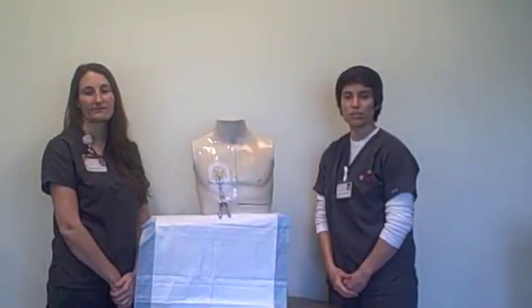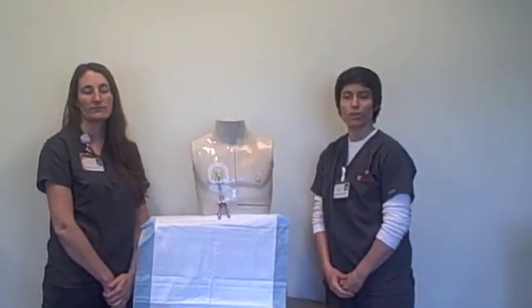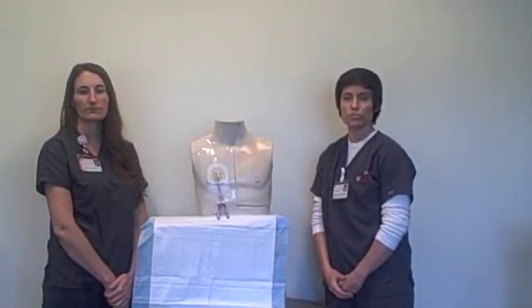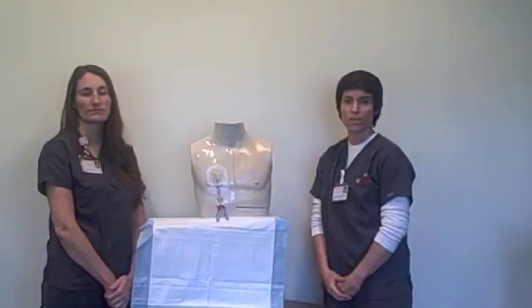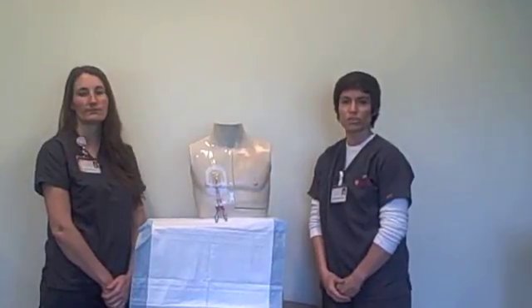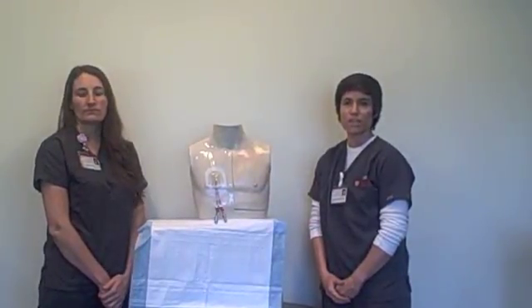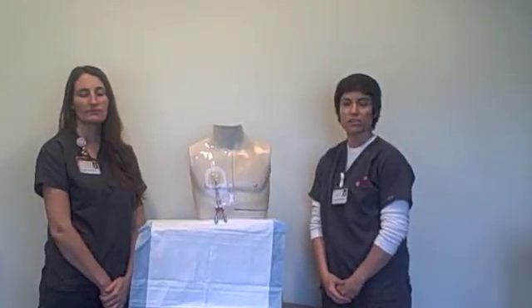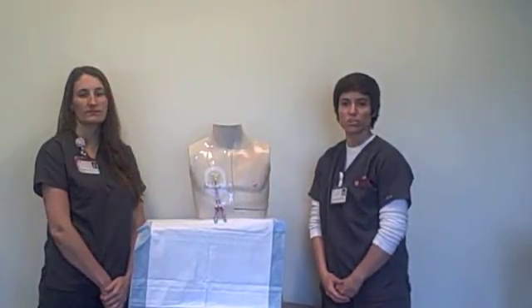Signs of infection may include a fever of 100.4 or higher, tenderness, redness, warmth, swelling, drainage at the catheter site, or feeling chilled after flushing the catheter. If you develop any of these signs, contact your nurse and or doctor immediately.